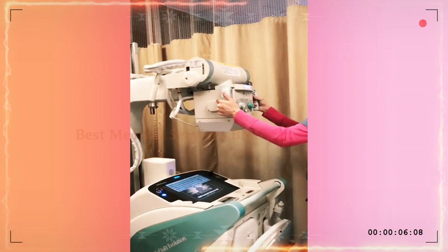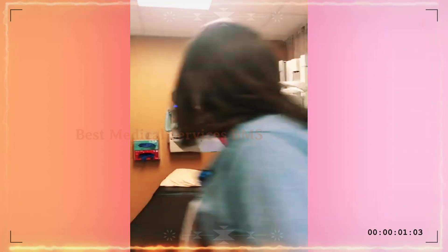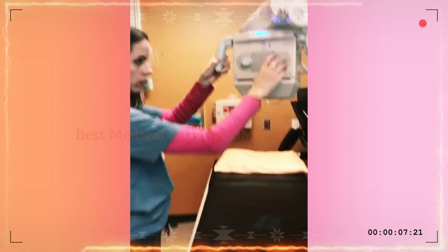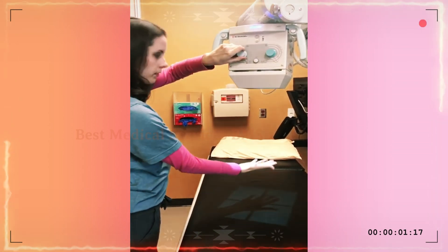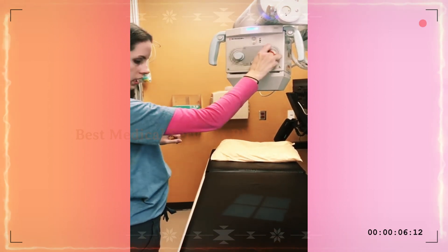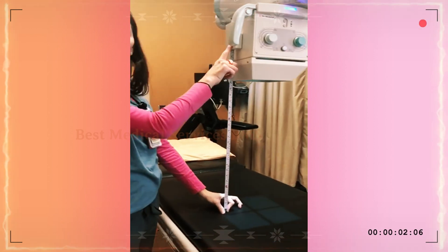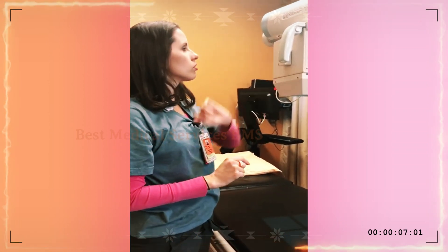In order to move the machine itself, you have to enable these buttons. Your collimator light button is this white button here — if you hit it, you're going to see the light. As you can see, the collimator dimensions are here, easy to use. The tape measure is located here on the side of the Shimadzu portable — very easy and handy to use.